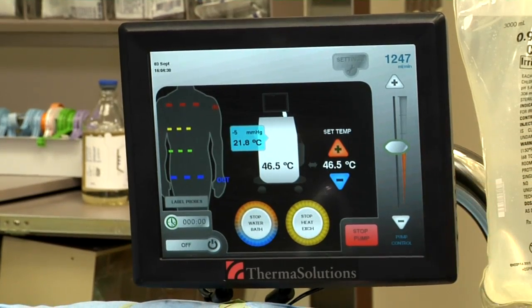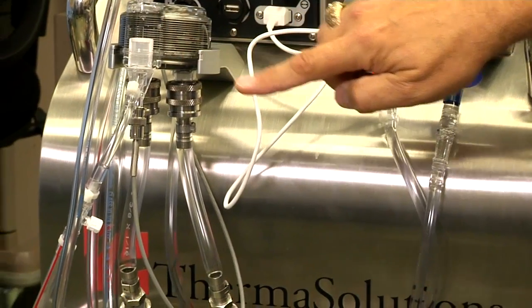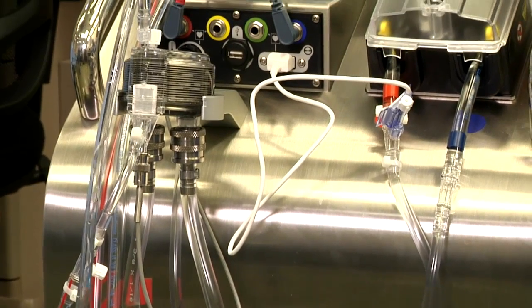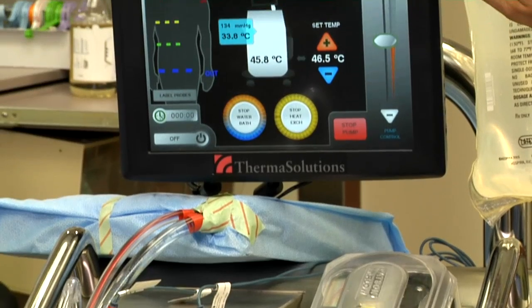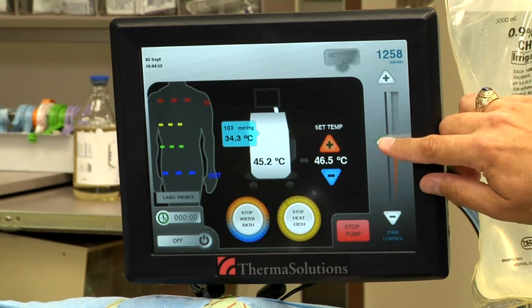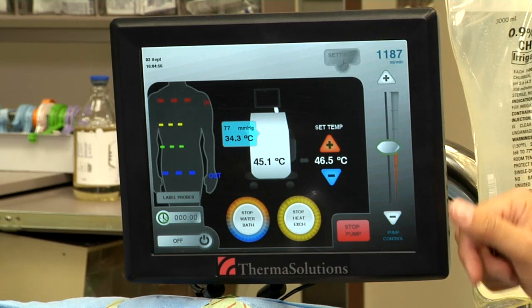If we look down at our pump, we'll see that water is now flowing through our circuit and is beginning to become warm. The number displayed is the milliliters per minute being circulated through the system, and anywhere from about 800 to 1200 is a good setting when you're pre-warming your circuit.